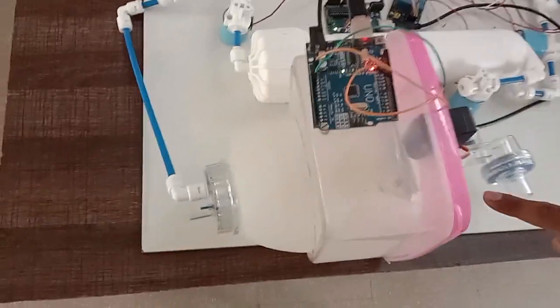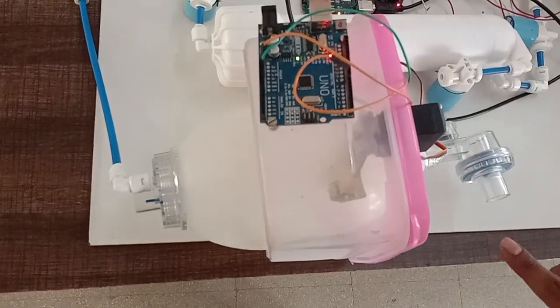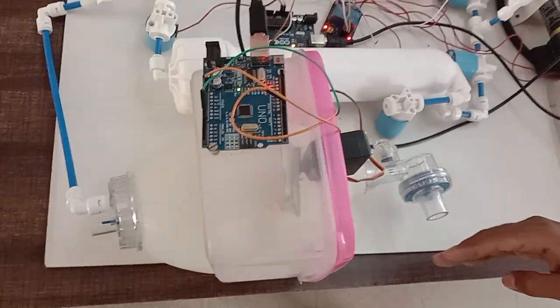And now, over here, the Ambu bag, it will be compressed to get the air over here.